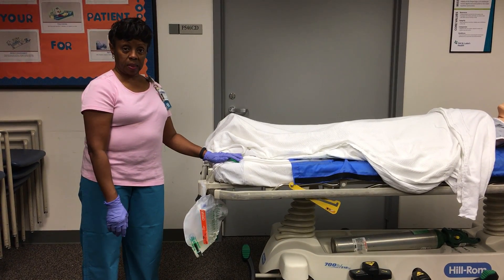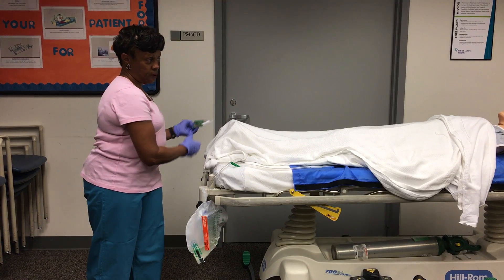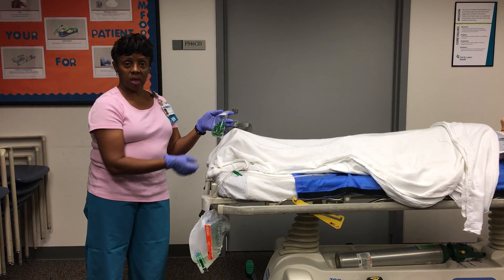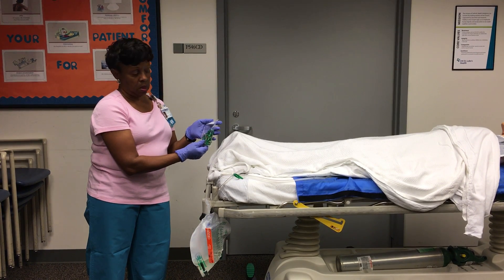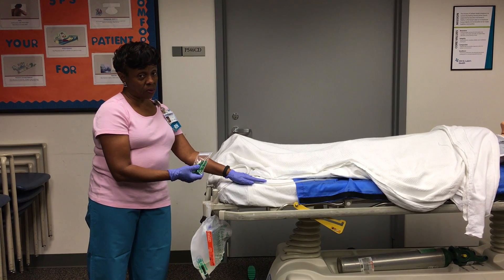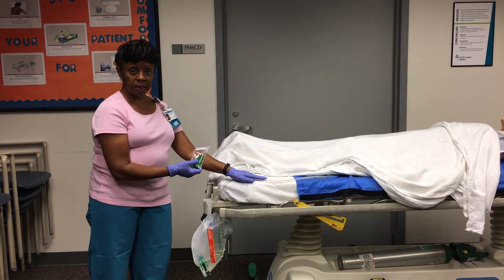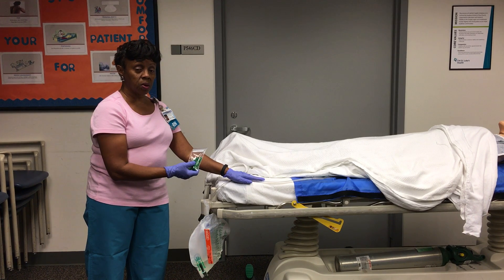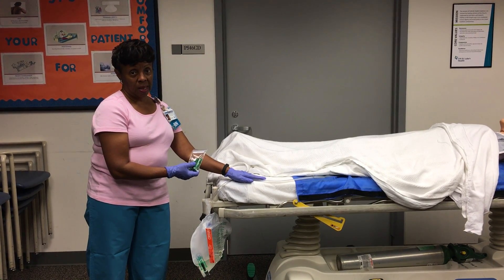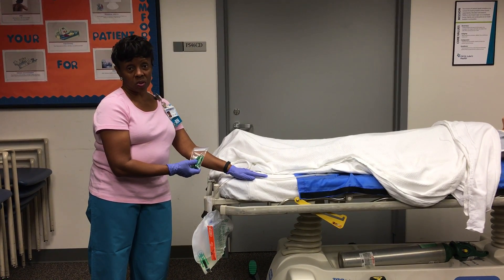Sometimes the clips break, so we have prepared bags that you can take with you to have extra clips if the patient must continue the catheter. However, the best way to prevent a CAUTI is as soon as the catheter is ordered to be removed, please remove it. Policy states within two hours of the order.